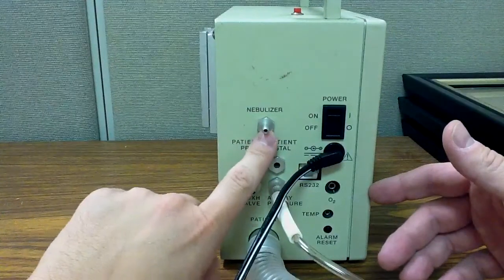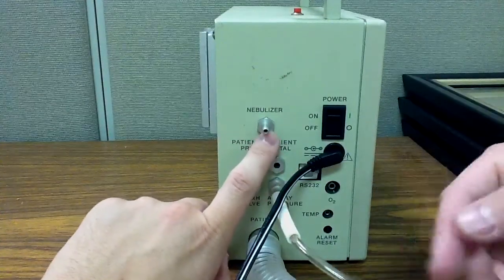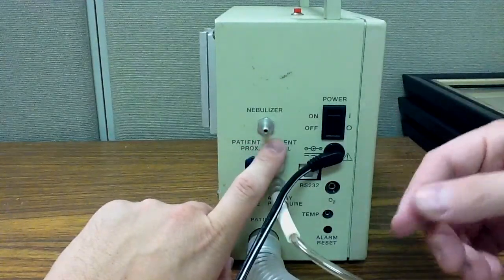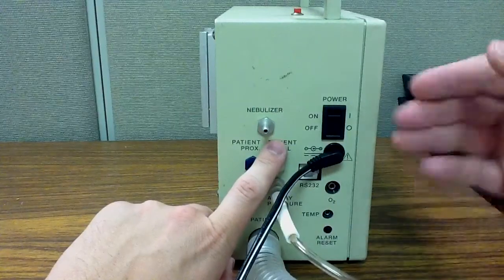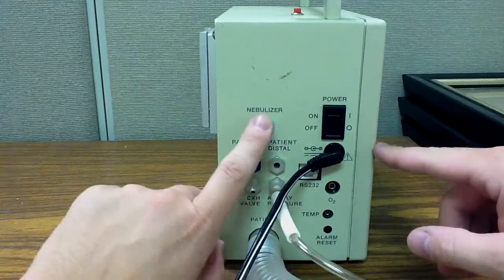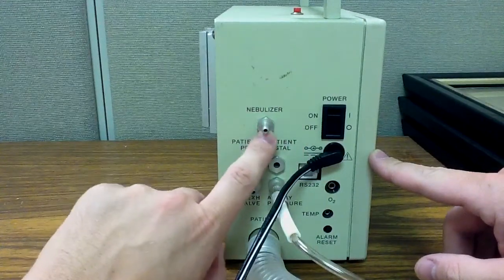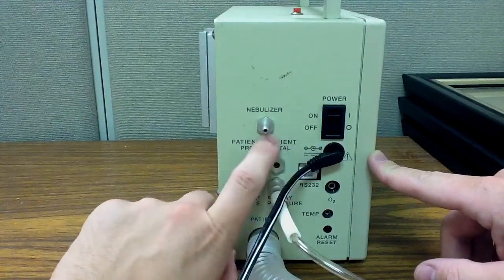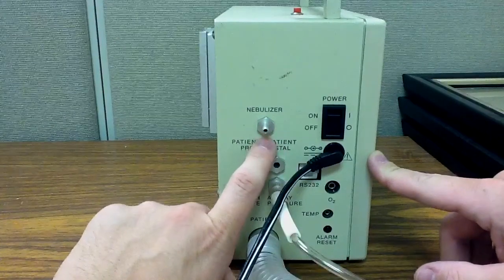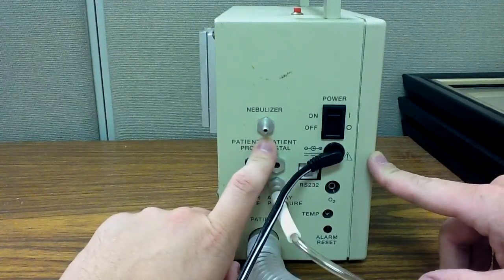This is different in that the only time that the nebulizer activates is when the ventilator delivers gas. And that's when the patient actually gets the nebulized medication. So it's going to generally take a little bit longer to administer a breathing treatment with this ventilator unless you simply decide not to use the ventilator.